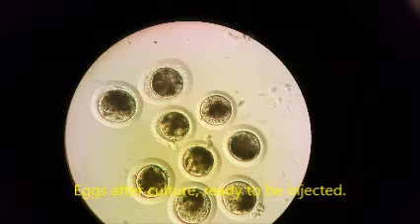Therefore these have to be thoroughly rinsed over and over again until all the blood is rinsed out, which allows us to search for the oocytes. We'll probably accumulate several oocytes where normally the search is over once we have found one embryo. The debris in the oocyte flushes is a problem because oocytes tend to stick to everything — they are very small, very difficult to find, and there are many of them. They also tend to stick to the screen in the bottom of the cup, so the cup must be thoroughly rinsed.